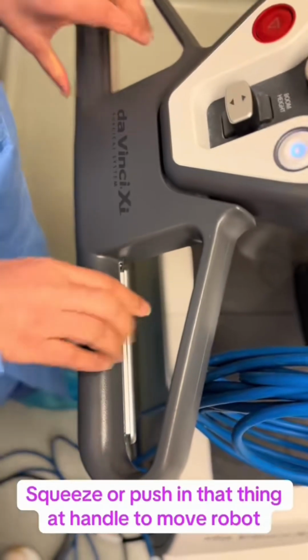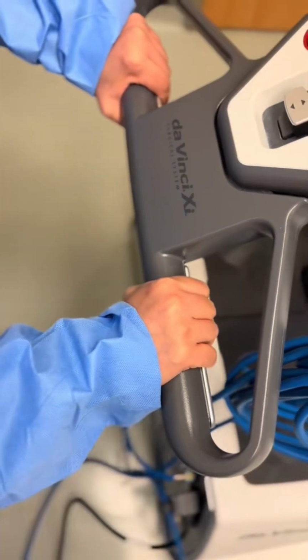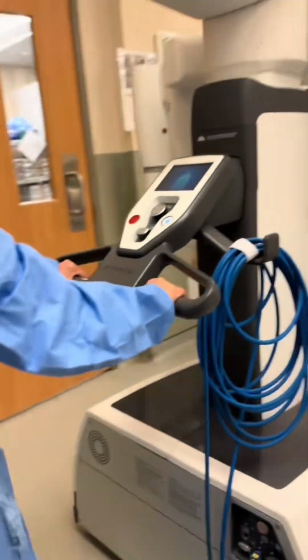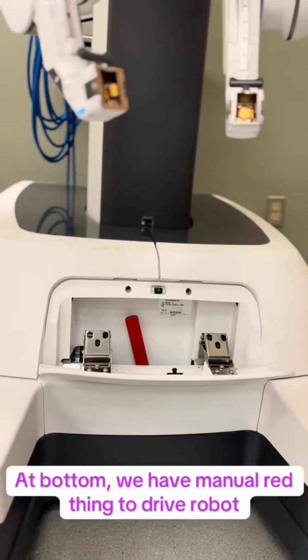And the important part of circulating is to drive the robot. Push in the thing in the handle along with moving the robot. You can see there is a manual operator at the foot of the robot.